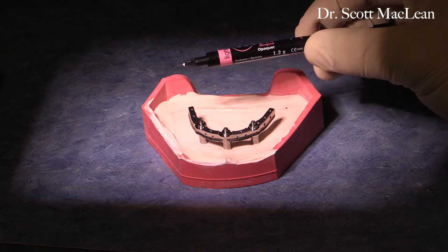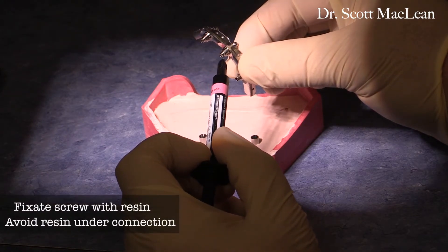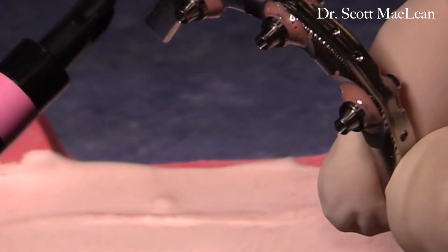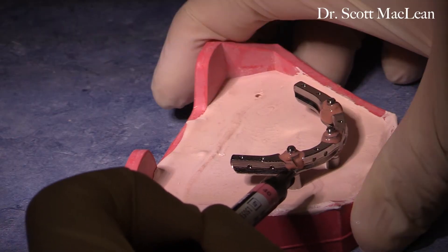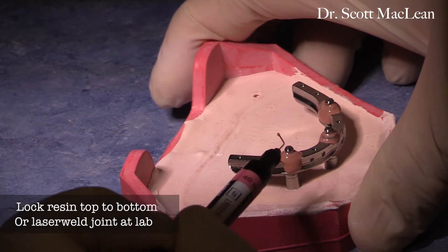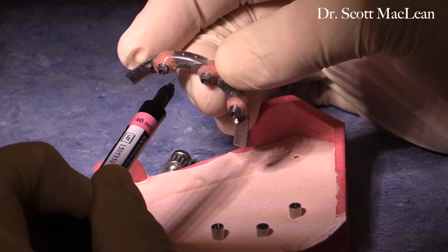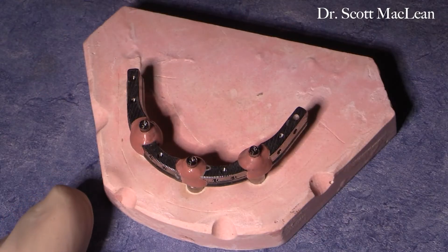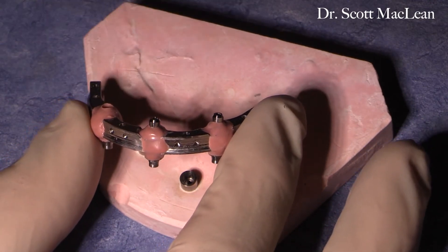It is prudent to micro-etch the bar where you're going to put the resin, so we'll take the small tip and start to go around the abutment area. We're very careful not to get resin where the abutment is going to sit on top of the replica — curing and stopping carefully — starting with the top and bottom and then connecting as we light cure the two together. This keeps the resin secure when fabricating the prosthesis over the bar. The bar is about 5.5 millimeters high, giving it a good moment of inertia so that with the cantilever you have a thicker bar and less rotation.